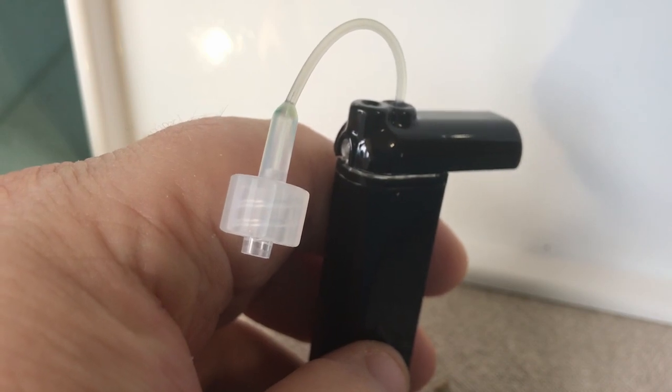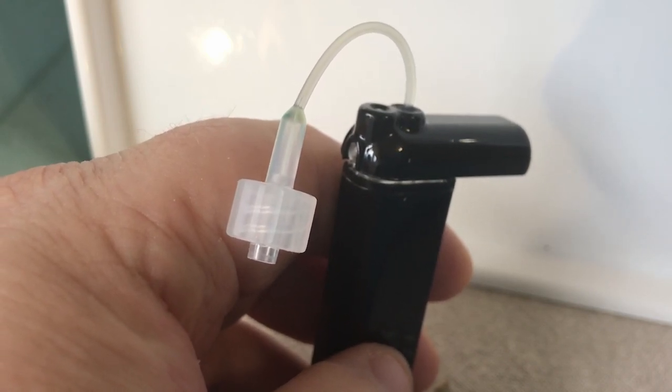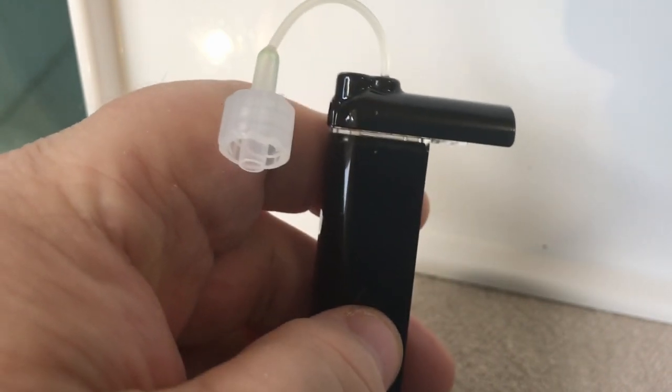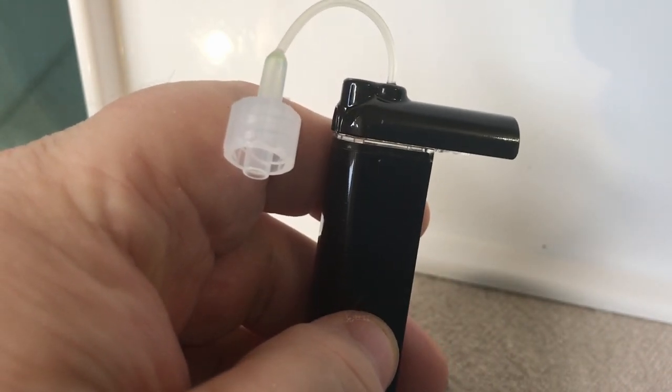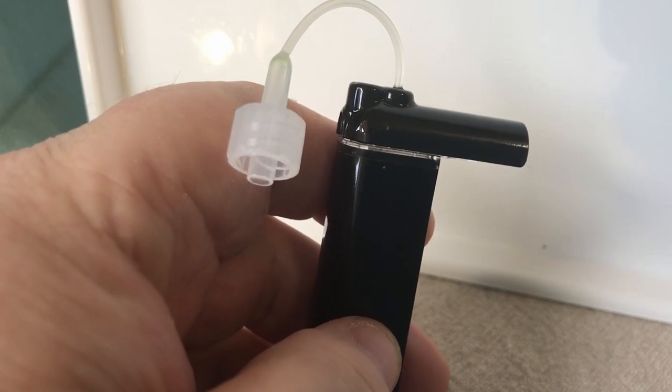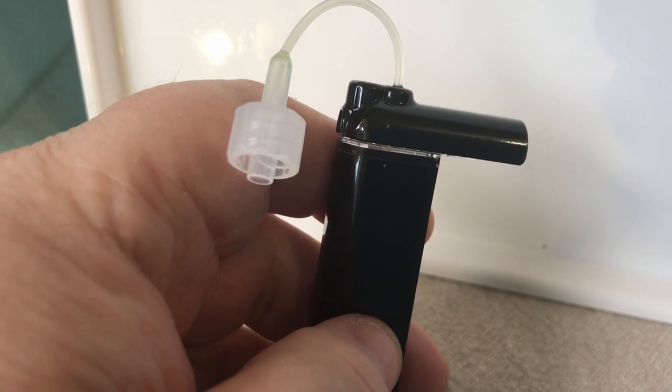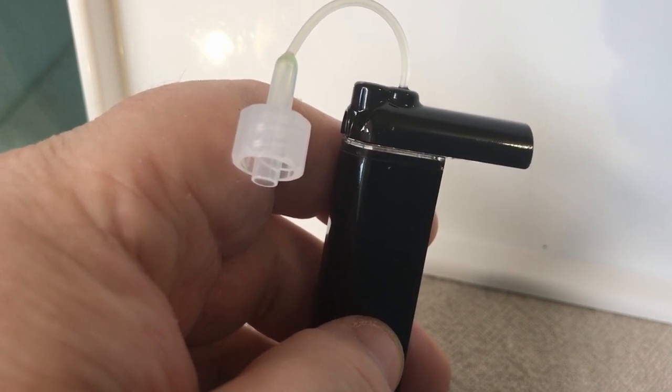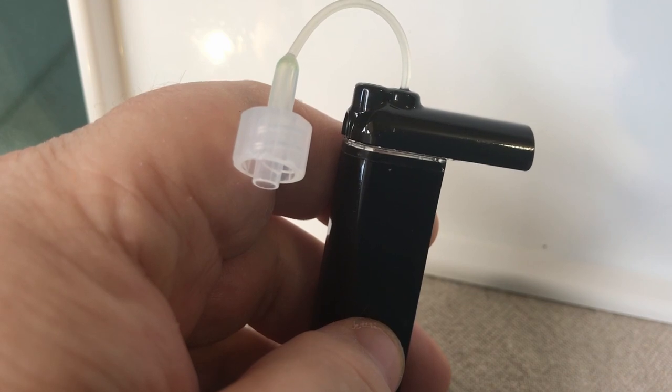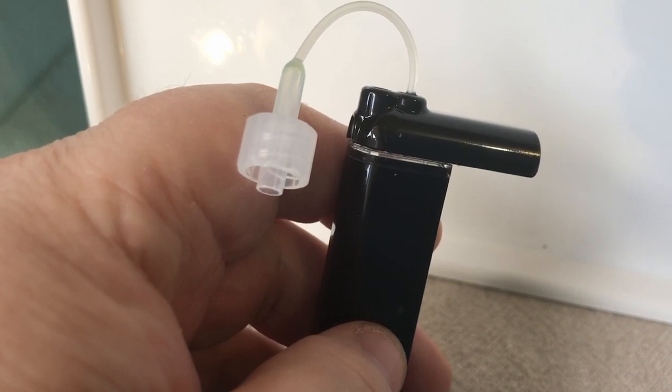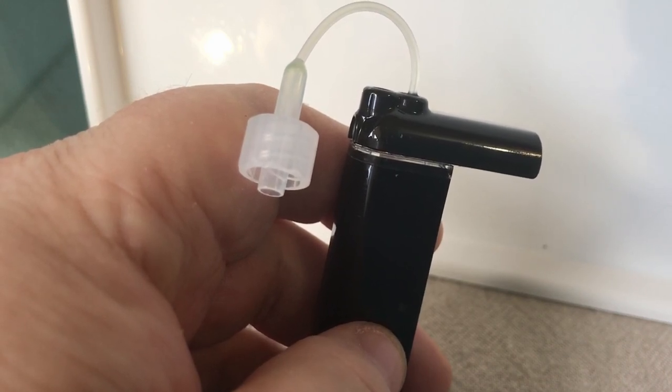Good morning everyone. Today I'm going to talk about a little modification to the refilling process of the T-Slim cartridge. First, we'll watch the start of the Tandem video that I've found on YouTube and I'm going to interrupt it where I change the process.